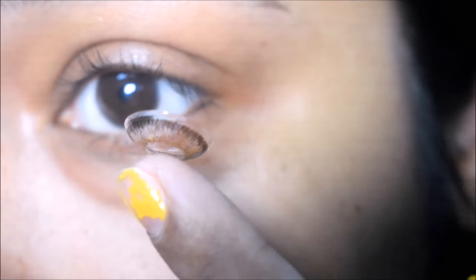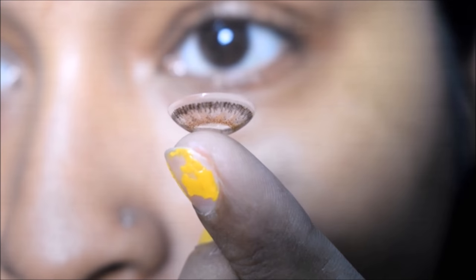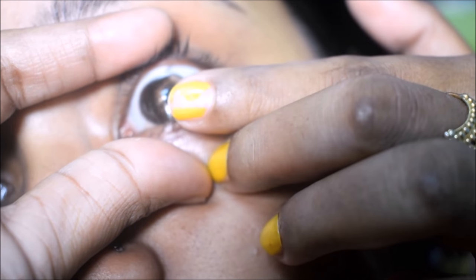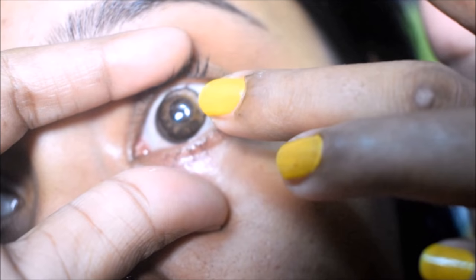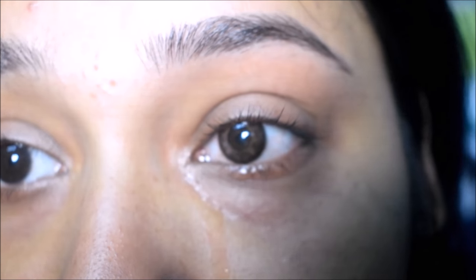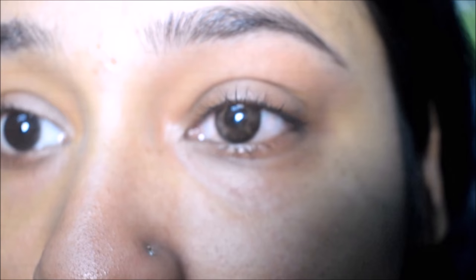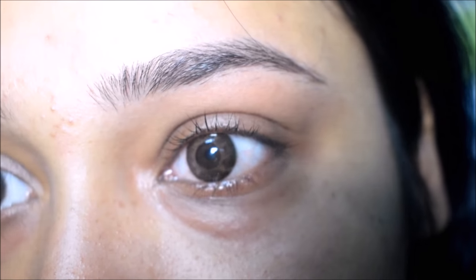Stretch your eyes and place the lens here. Just place it here. Once you close your eyes, then your eyes will set. When you put the lens on your eye, it will be normal — it will set on your face. Just take your finger and place the lens on your finger so that it will be set in place.